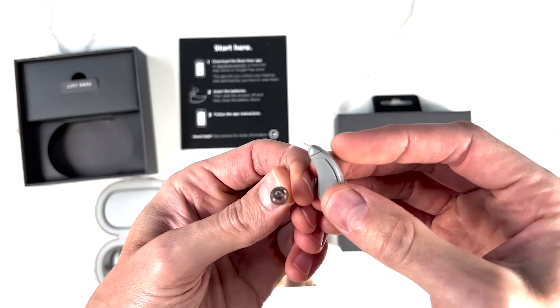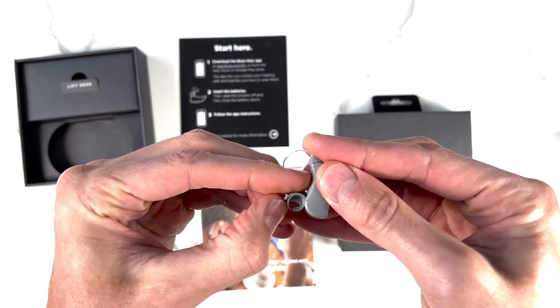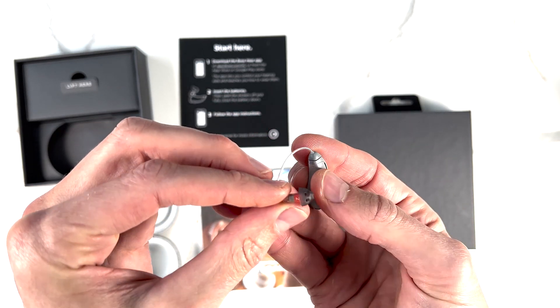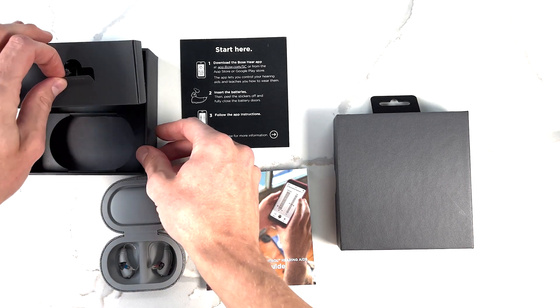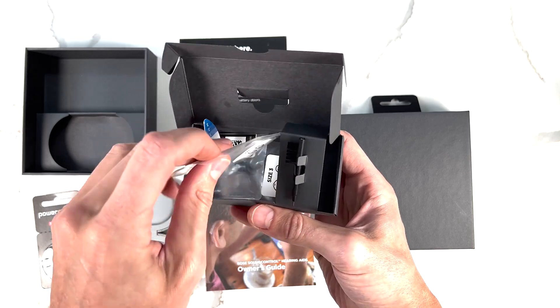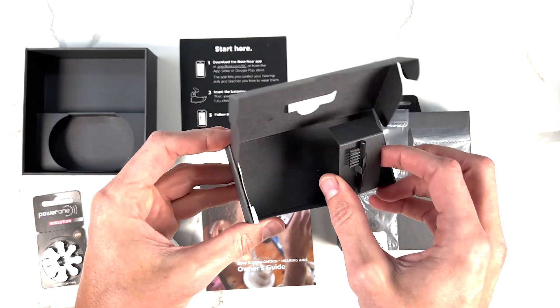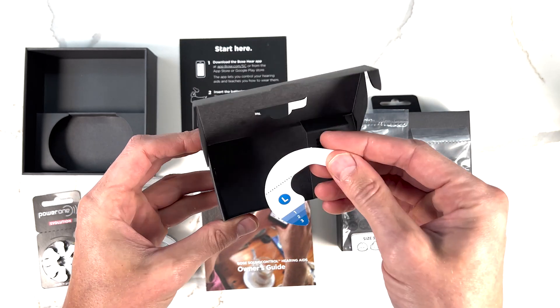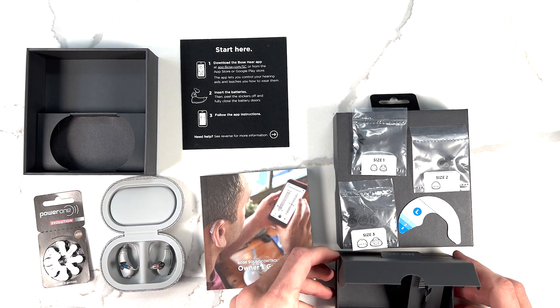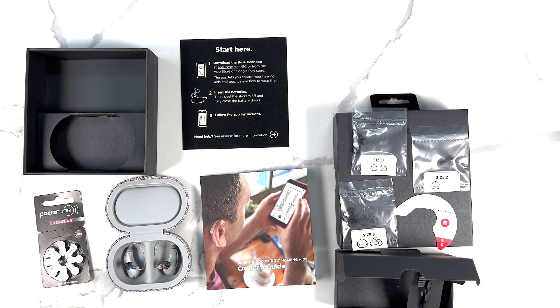Initial reactions: there's nothing spectacular about this as a hearing aid. It's not pushing the boundaries at all. It looks like a very conventional hearing aid. It's battery powered and there's a dome been put on the end already. Looking at what else has been provided: some batteries, some domes in size 1, size 2 and size 3, what looks like a little cleaning tool, and then this little thing which I'm assuming I'll learn how to use later. Bose hearing aids.